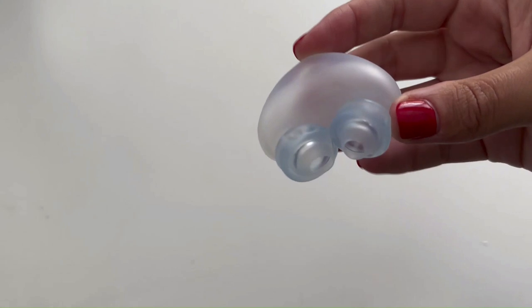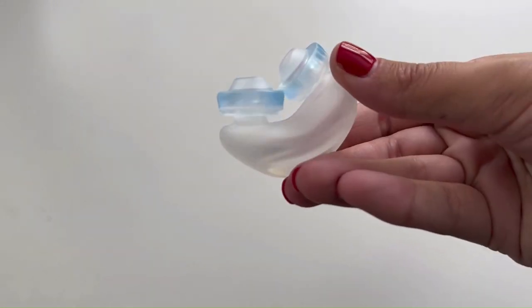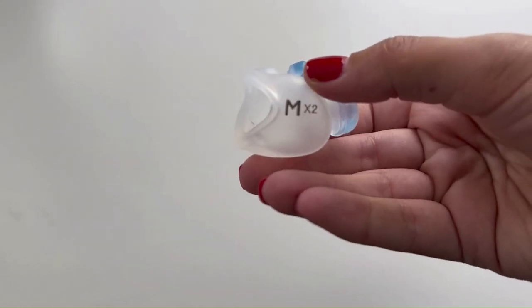This flexible gel cushion rests gently on the outside of a user's nostrils to avoid irritation and discomfort.